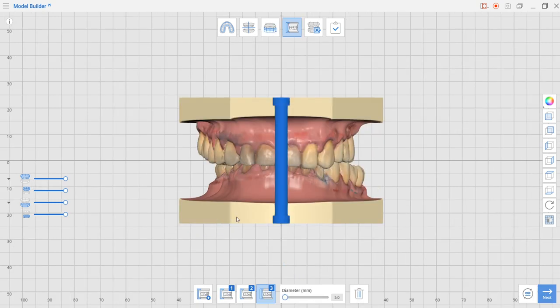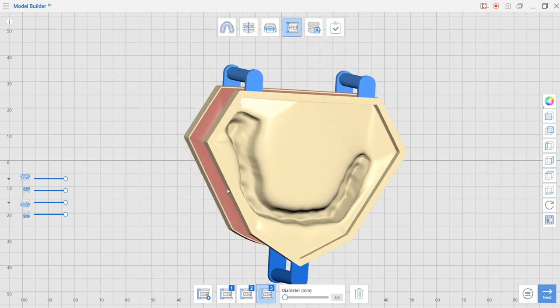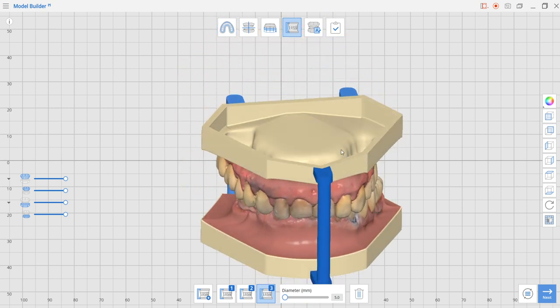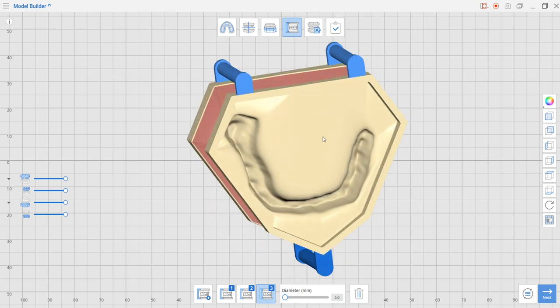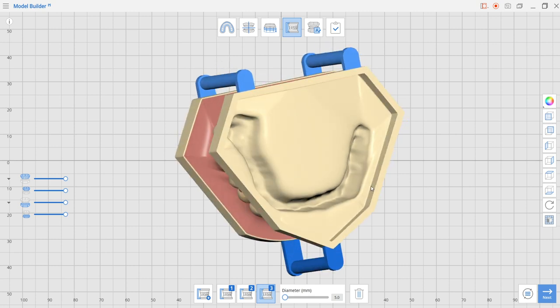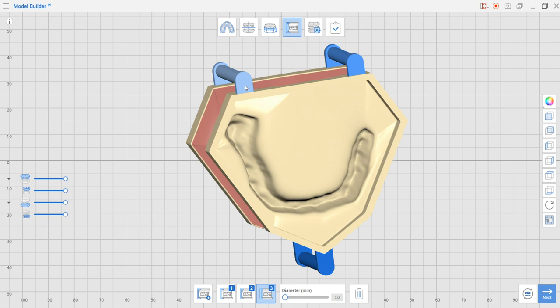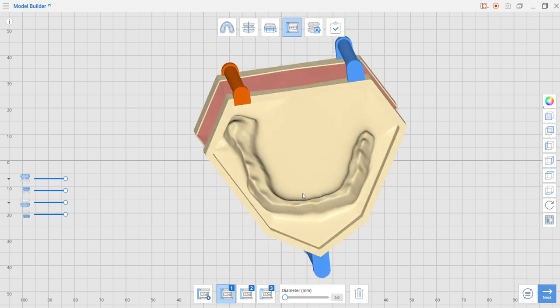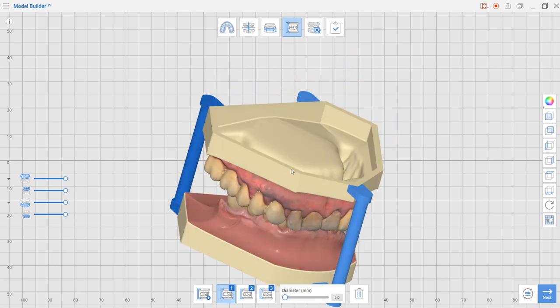This is the attachment step. Normally it generates three attachments. If you see them blue, this means they will be able to be attached to the model by the app with no problems. But if one of them or several come in orange, this means they are not in the right position and you'll have to drag them along to find them a better spot.